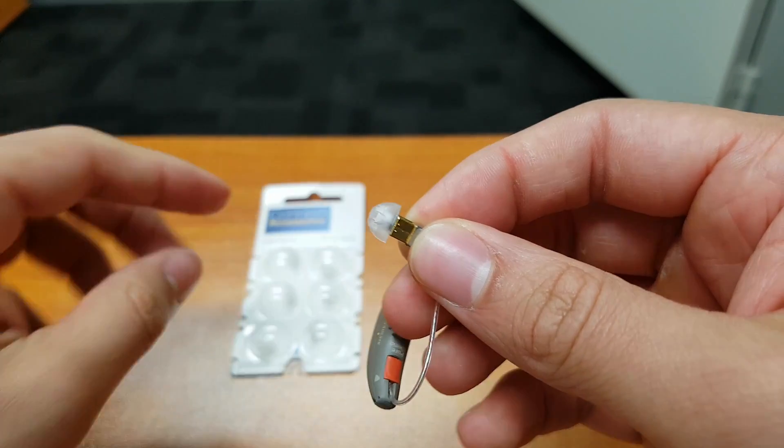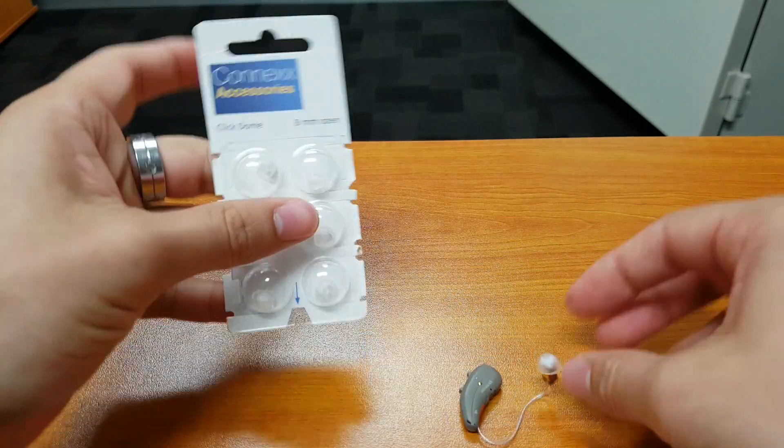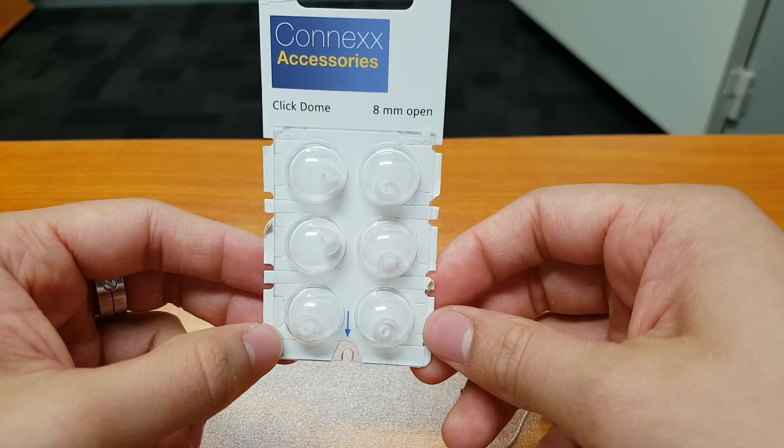In order to remove this rubber dome, what we will need is the packaging in which the rubber dome came in.